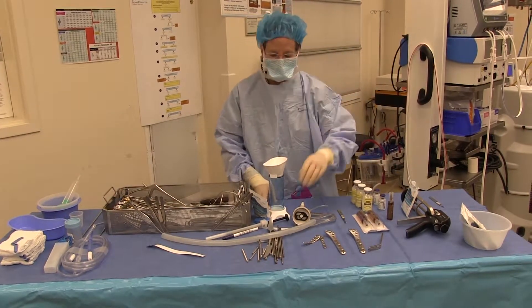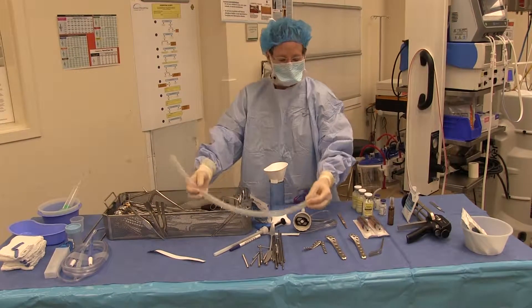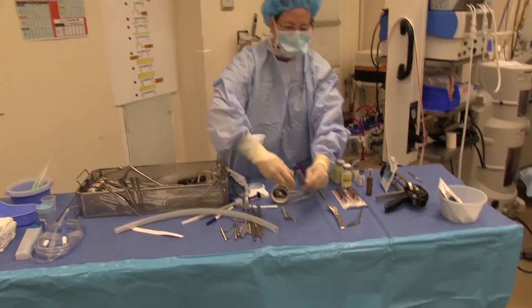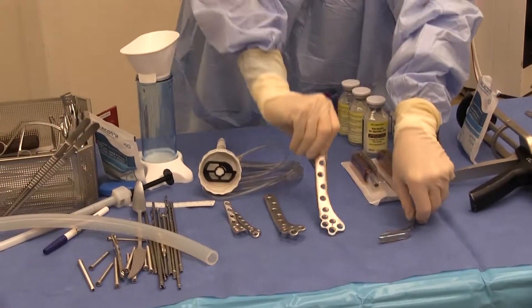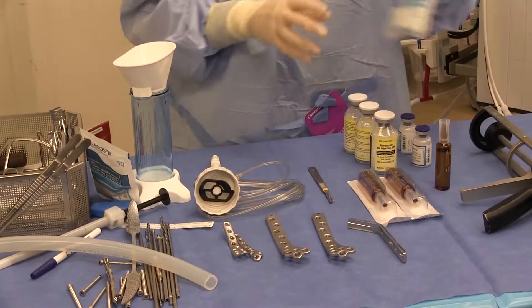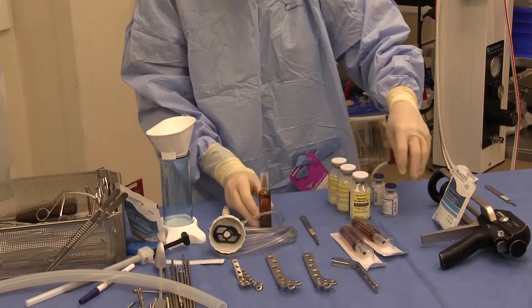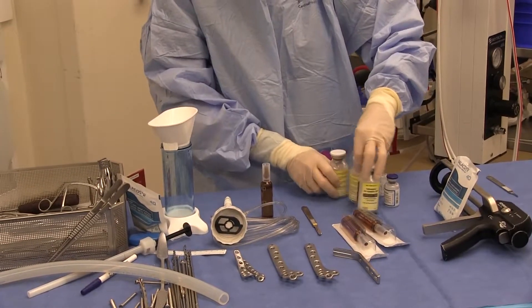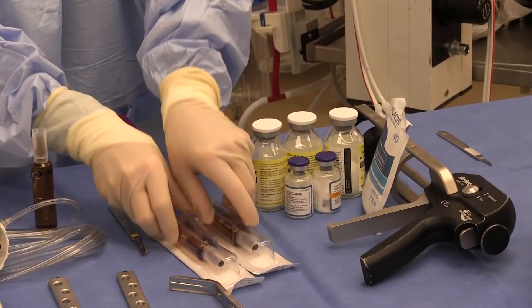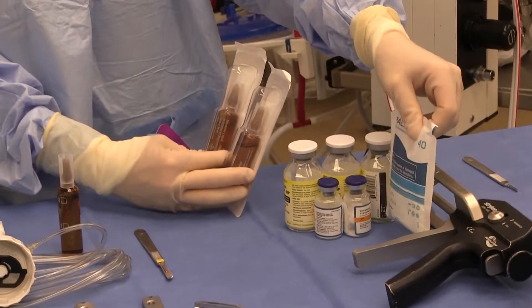What you need before you start is some Tygon tubing, silicone tubing, to help you make your plate. We have several different plate options here today of different thicknesses and variety, and we'll coat a bunch of these. We use a 40 gram pack of cement, and when we add the antibiotics, it winds up being 3.6 grams of tobramycin and a gram of vancomycin. You're going to need extra monomer because this will make it very thick — at least two monomers per one bag.